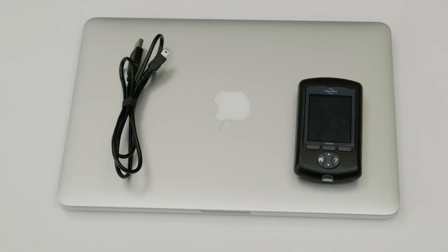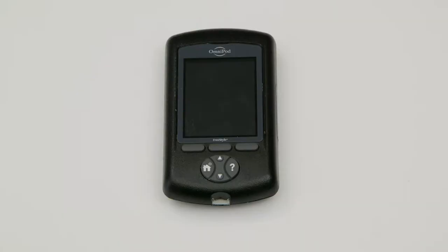Hey there! Welcome to Gluco. Today I'm going to show you how to sync an Insulet Omnipod PDM with the MyGluco web uploader.